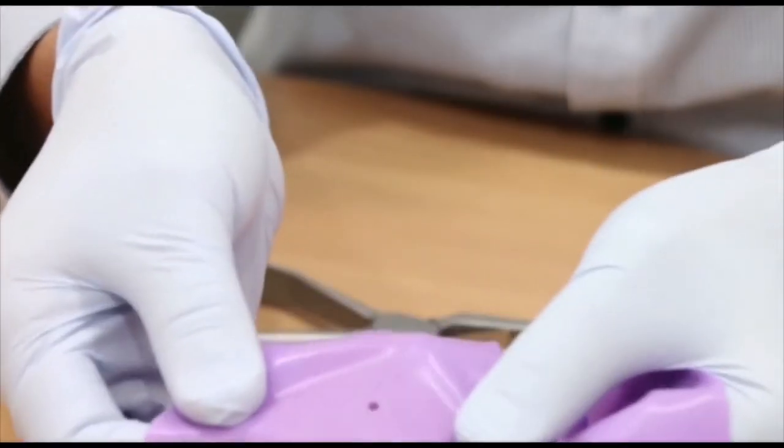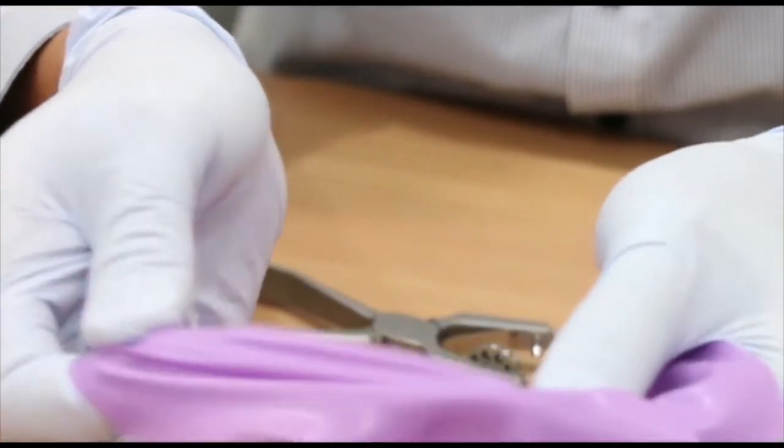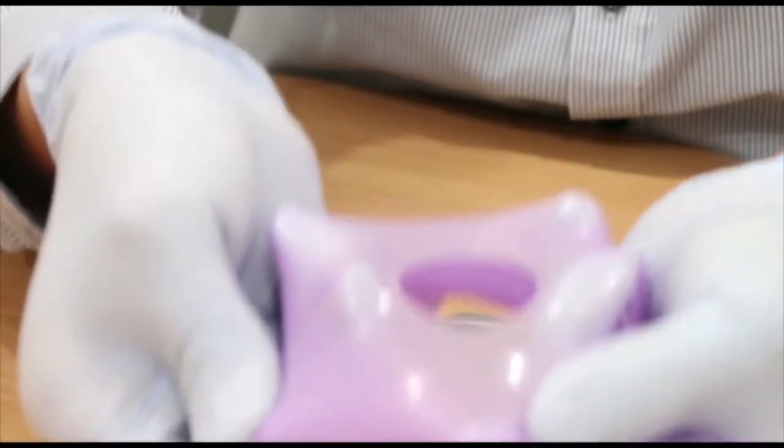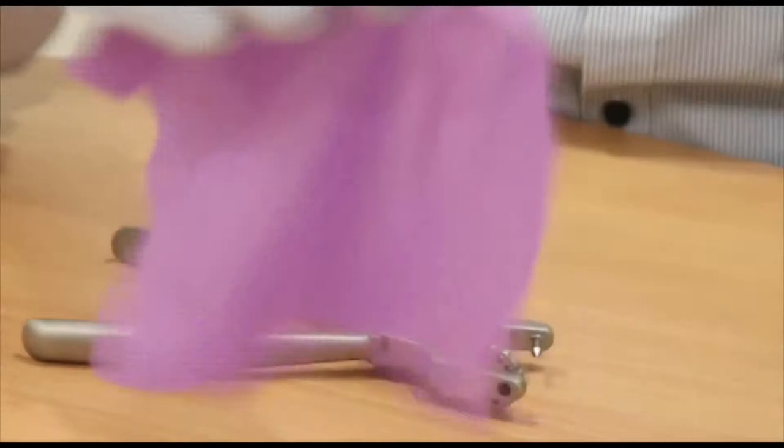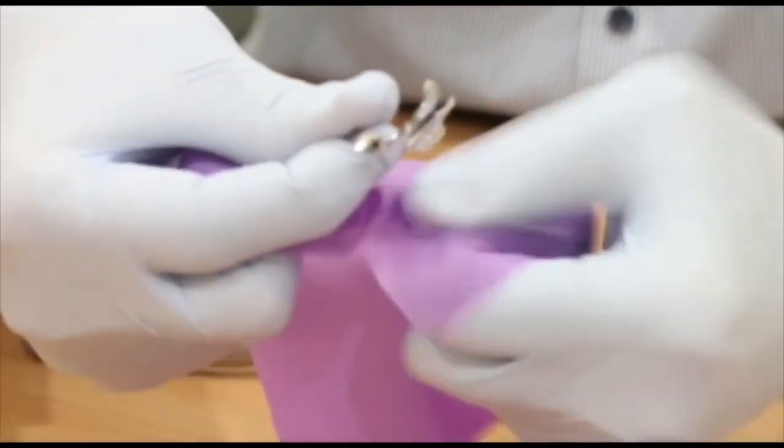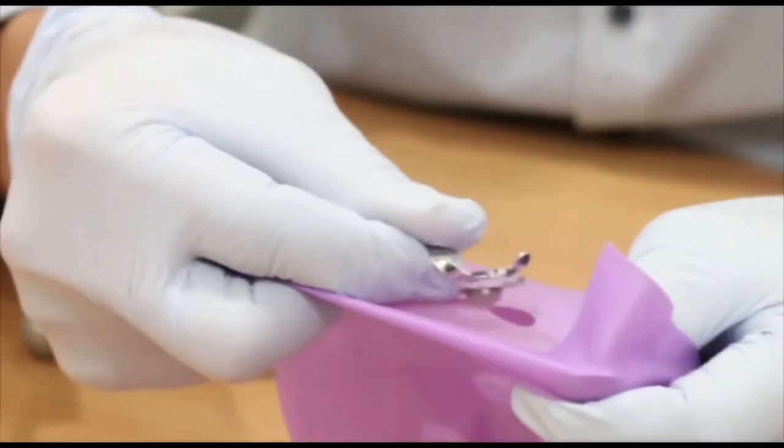Now you can see that I just punched a small hole, and this is the extent that the hole is able to stretch. Why is this important? It is very important because when we put the clamp onto the dental dam, it will not rip.